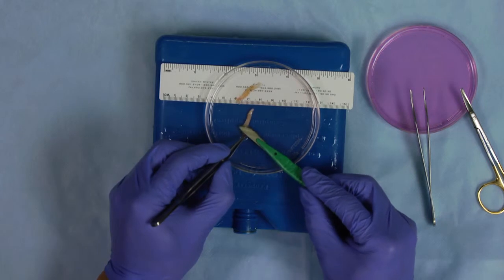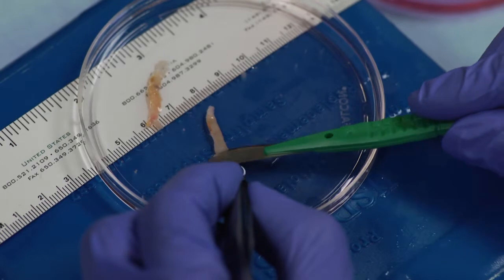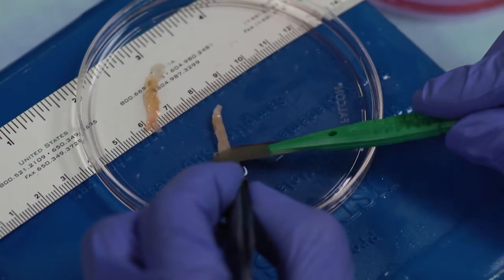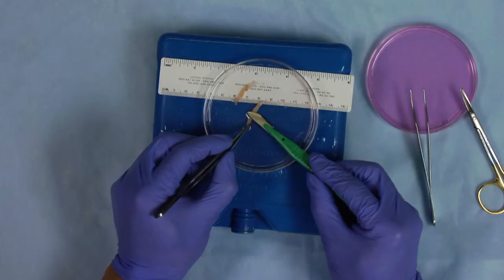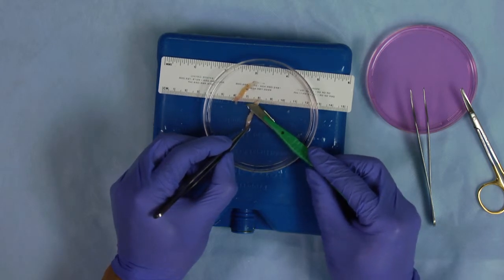Begin to refine the ovarian cortex tissues by thinning it from the inside out. Some people will find this goes easier with scissors and some will prefer a scalpel. Nevertheless, all of this waste tissue can be pushed aside and keep moving your tissue to clean media in a new dish.